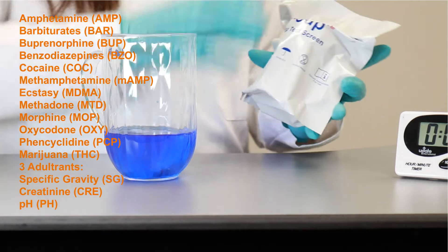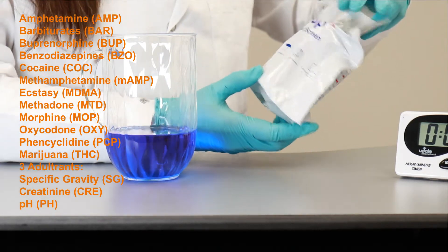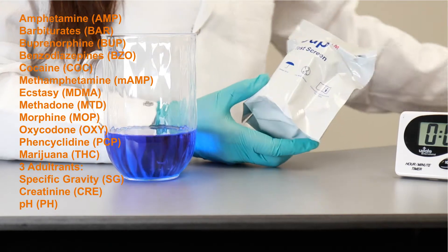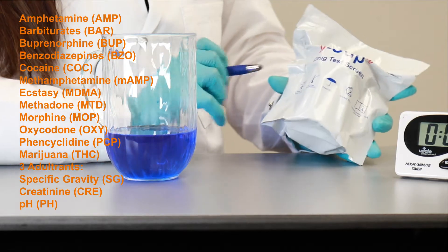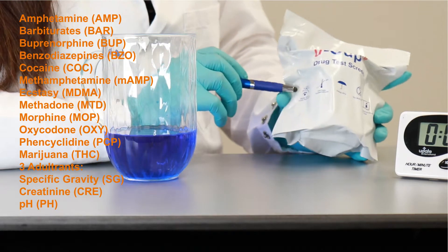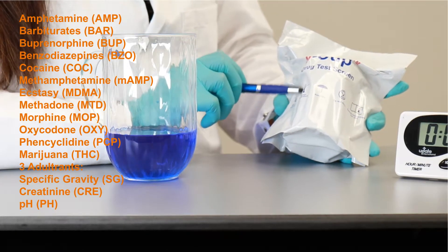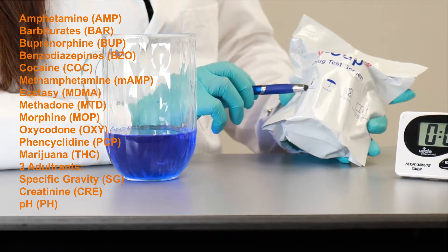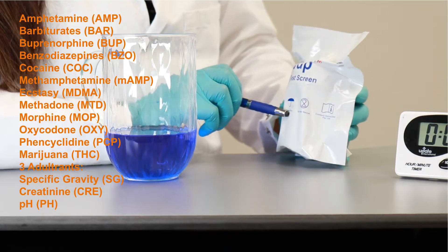If you look at the product, it is really nicely sealed. It's an aluminum pouch. In the front here, you have the safety and storage conditions. Right here, there is a keep away from sunlight. You have to keep the storage conditions at room temperature. So it's a pretty robust product. It goes from 2 degrees centigrade to 30 degrees centigrade. It's supposed to be dry.